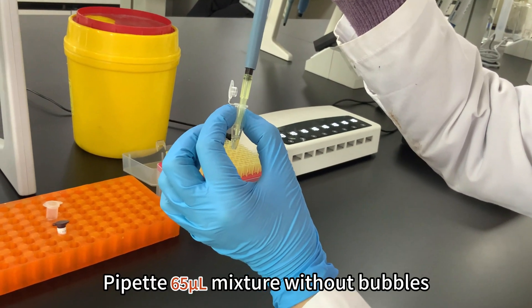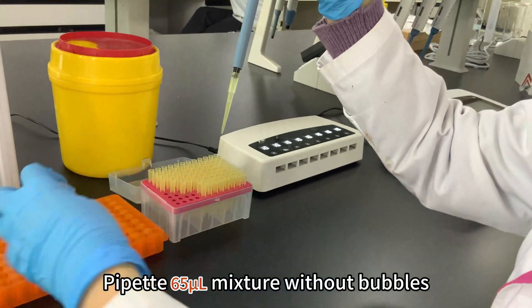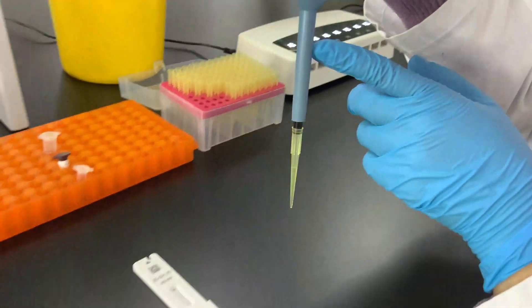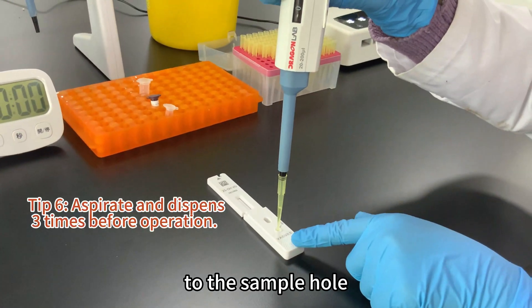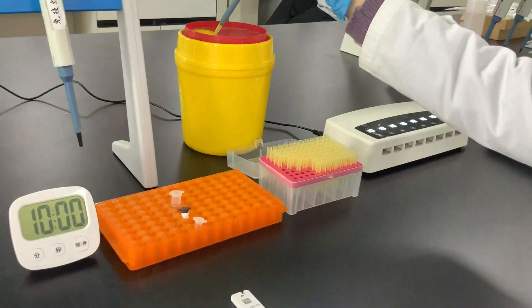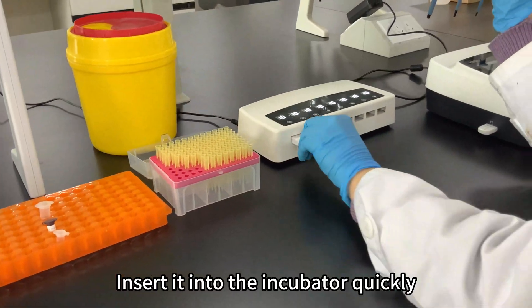Pipette 65 microliter mixture without bubbles to the sample hole. Insert it into the incubator quickly.